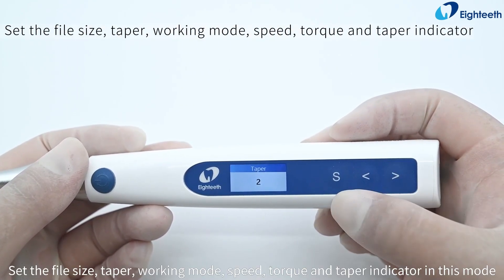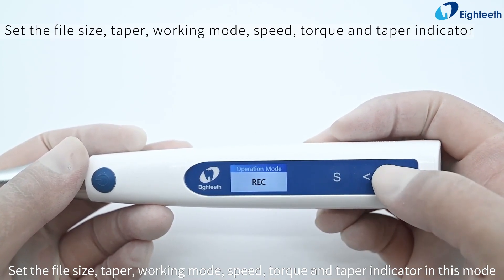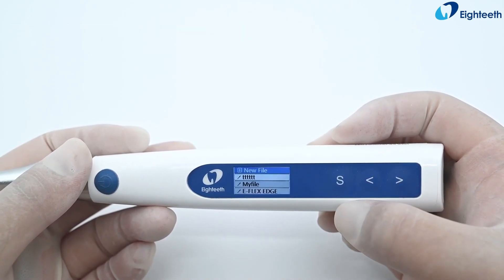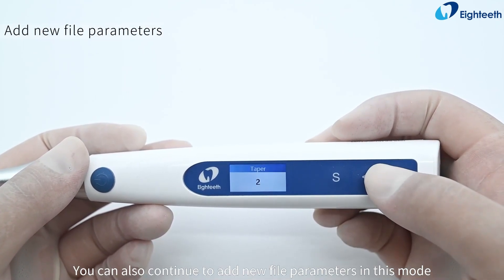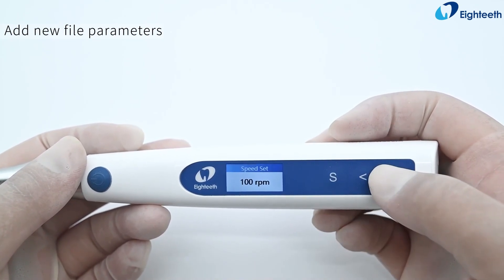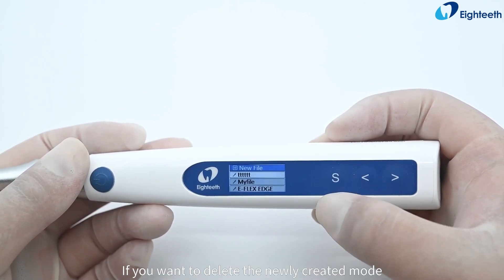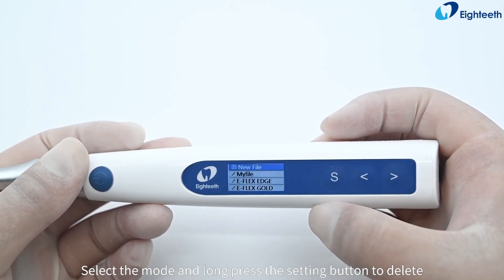At the same time, set the file size, taper, working mode, speed, torque, and taper indicator in this mode. You can also continue to add new file parameters. If you want to delete the newly created mode, select the mode and long press the setting button to delete.